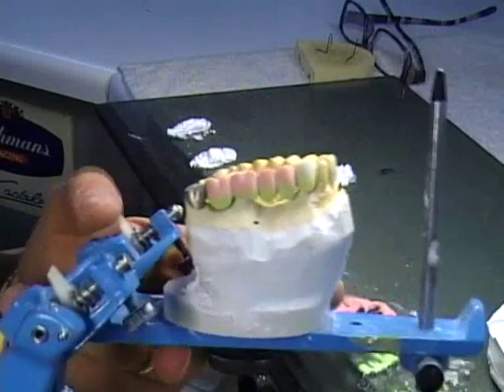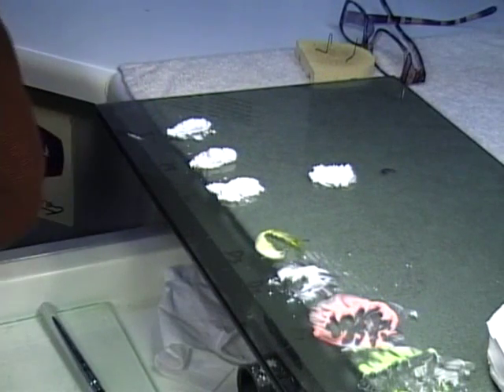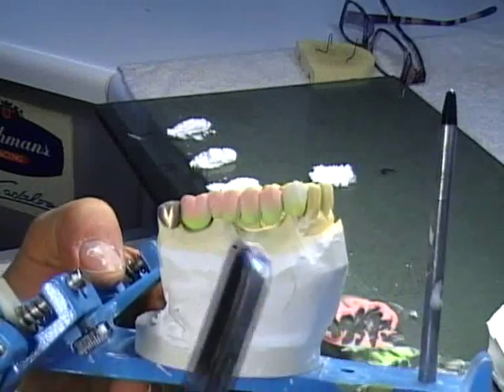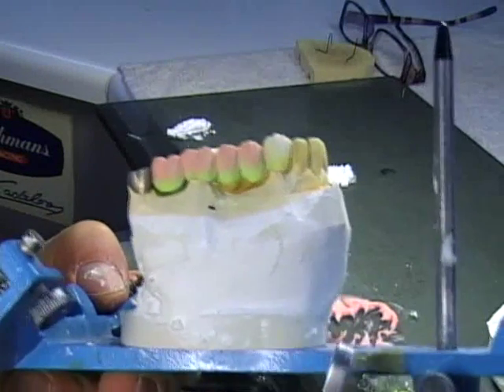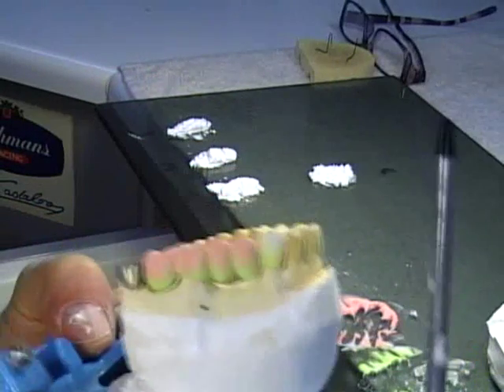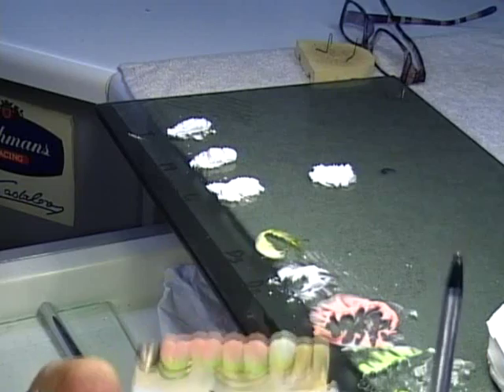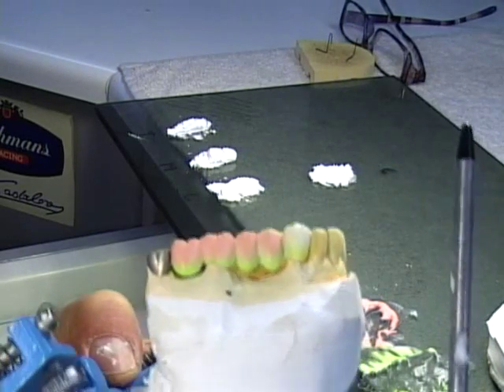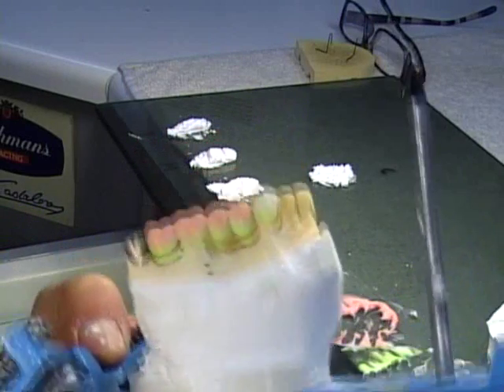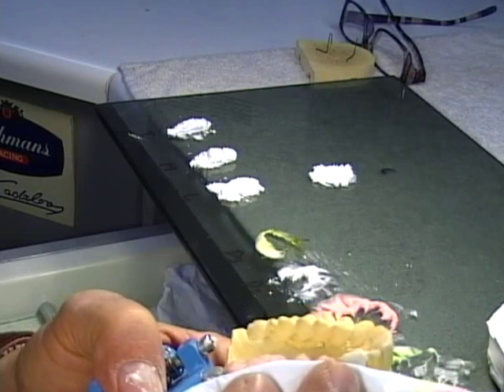So what I'm going to be doing now is just some light condensing so I can do some cutback. To do this condensing I'm going to do a little bit of tabbing. The tabbing — I'm going to be hitting my articulator, you see — until I get some of my surface right. Okay, there we go. Not much, just what's necessary. That's it.